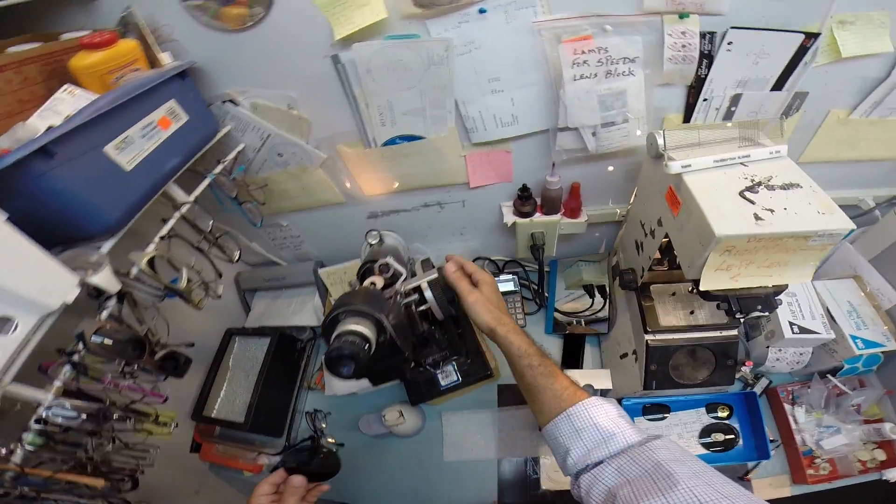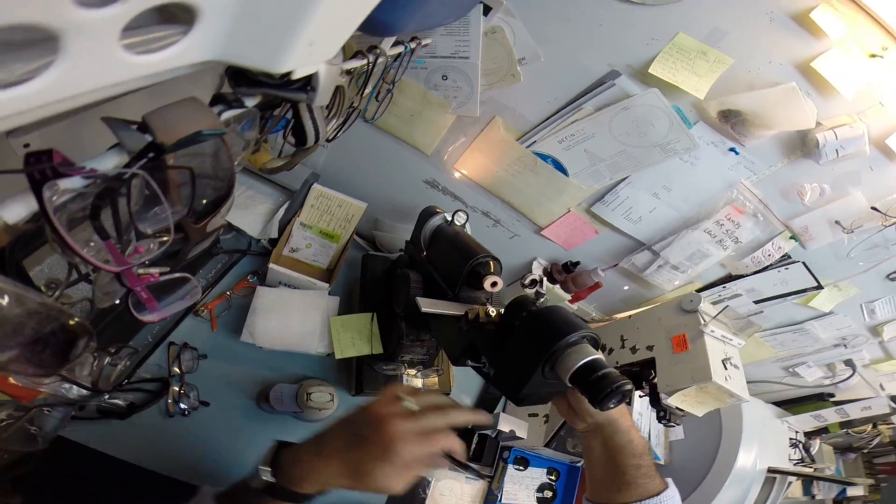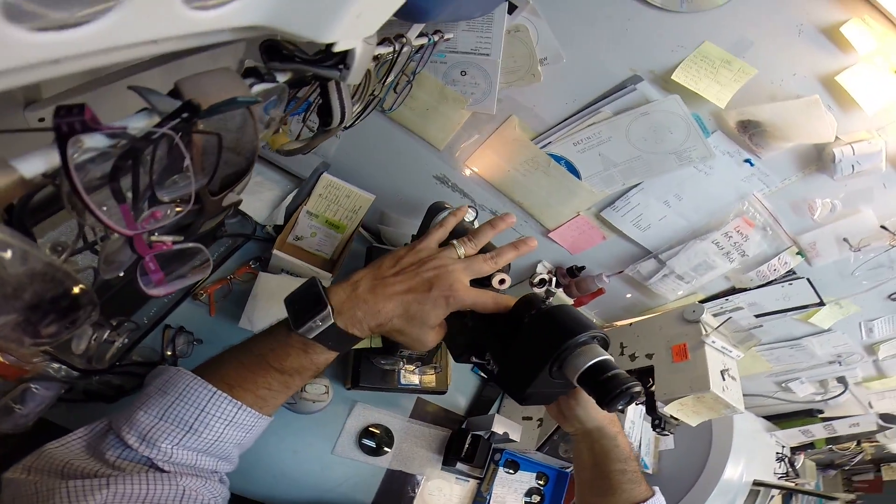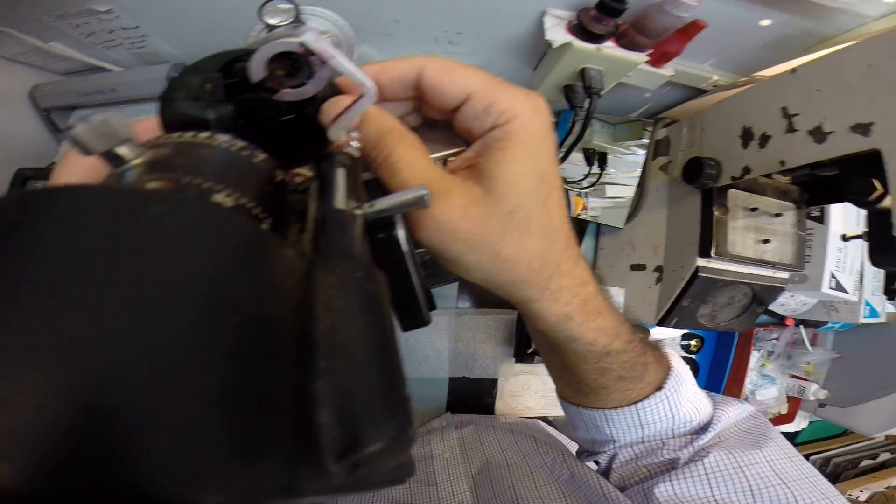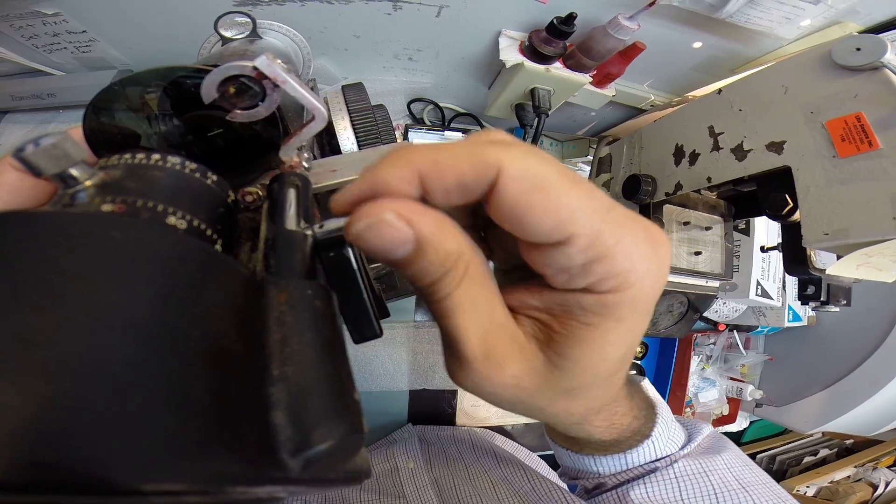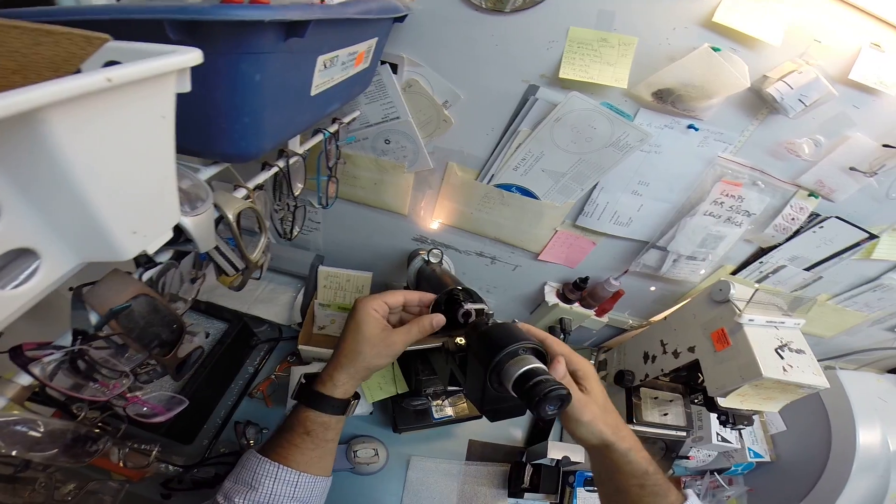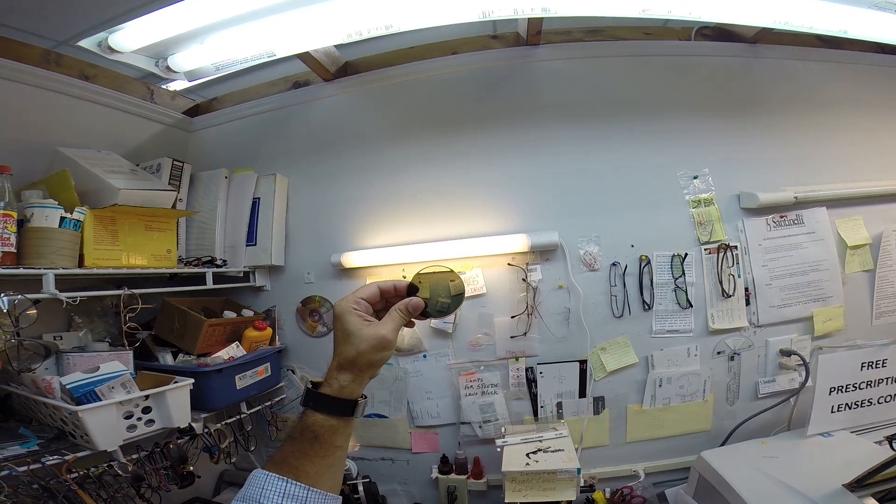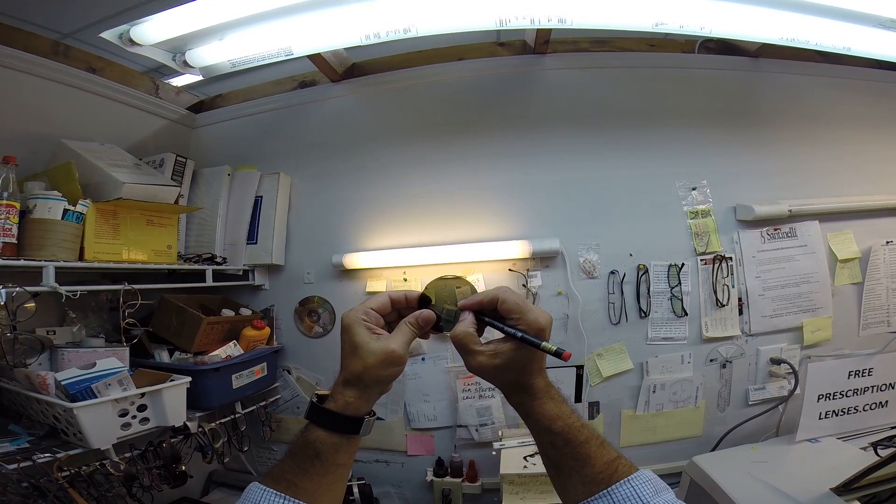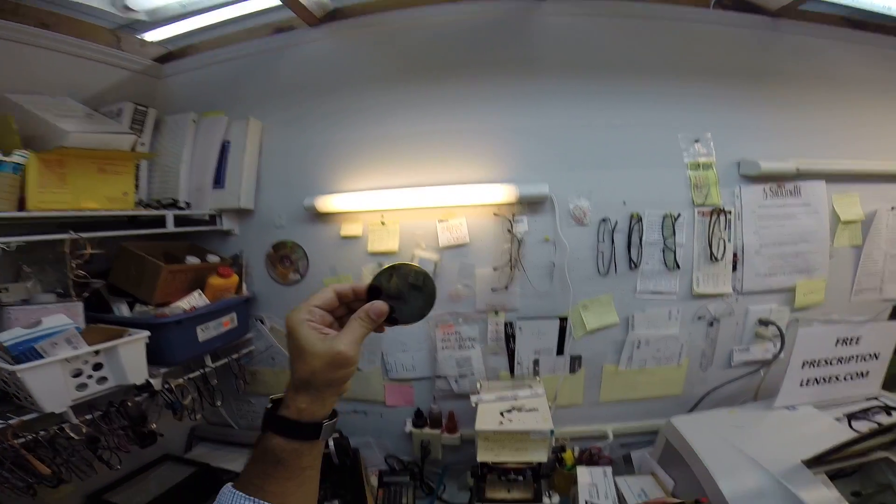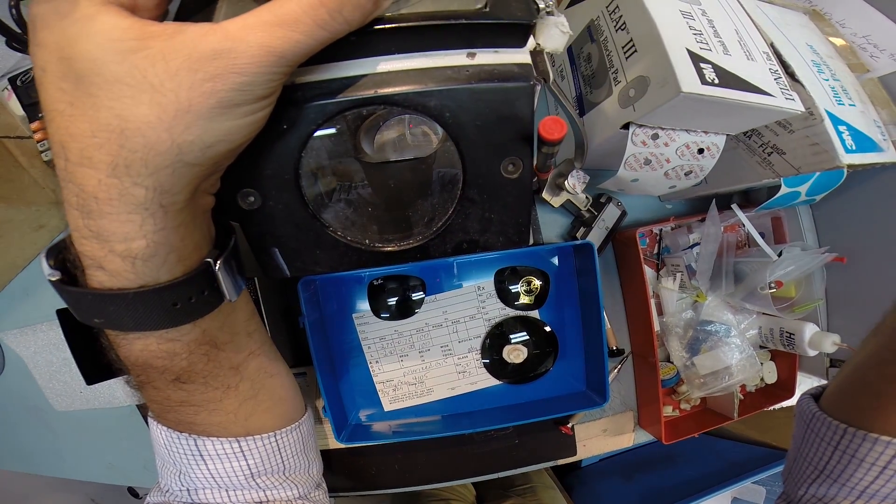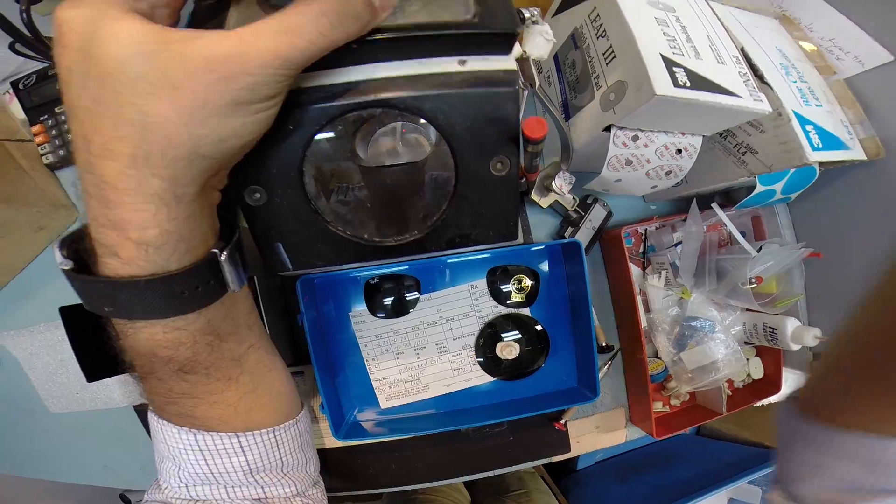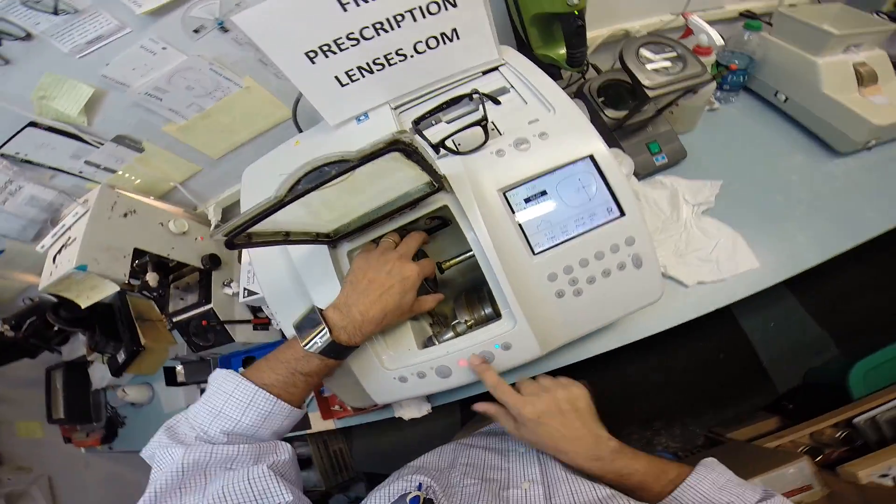Where's that right lens? 2.75. We're still on 100. Make sure that the points, I have three tips that are making sure they're going down into the ink. But when I said I was going to slow it down for you, I wasn't kidding. Okay, I see enough there just to darken them. Let me get this lined up. Now, let's put this in and hit start.